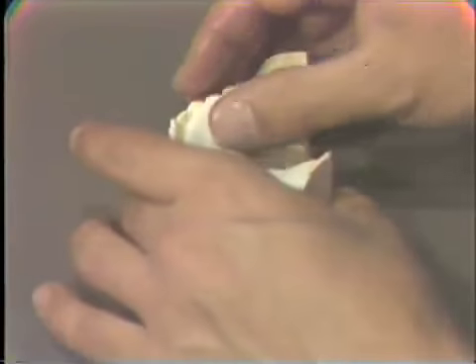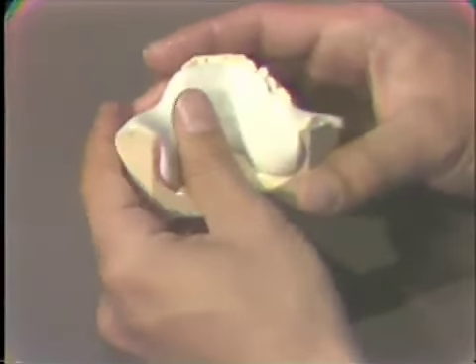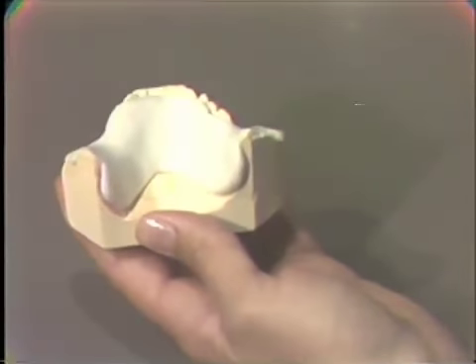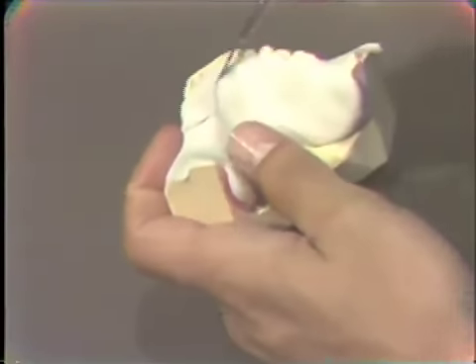Now, it should be of sufficient thickness that we're not questioning the rigidity, but it doesn't have to be so thick that it's going to interfere with occlusion and so on. So as I press this, I'm having the finished thickness in mind, which is probably 1.5 millimeters to 2 millimeters, and in the lingual bar area we will want it thicker than that. Remember, I said that if we had to, we would add a wire for the rigidity. Now that could be done either now or later. Now what I do is, while it is still soft, I begin to trim it.